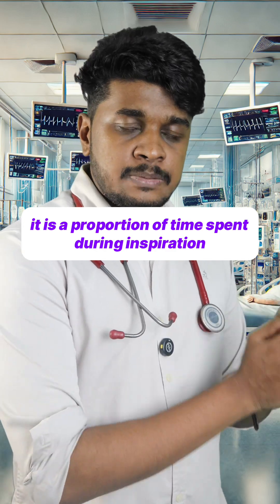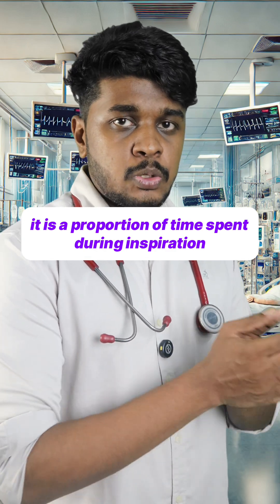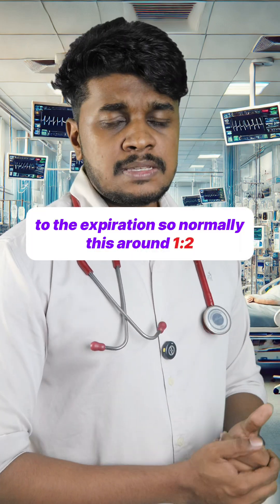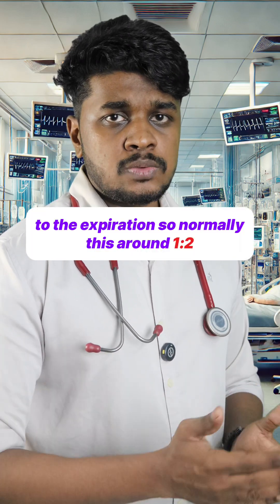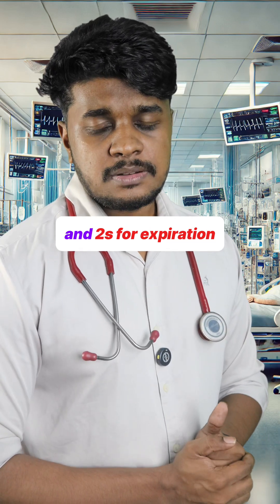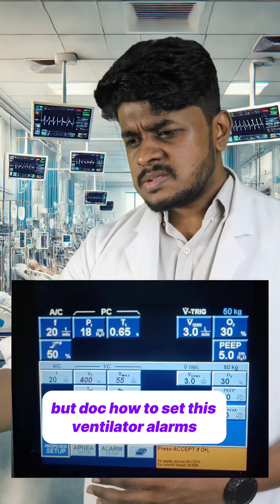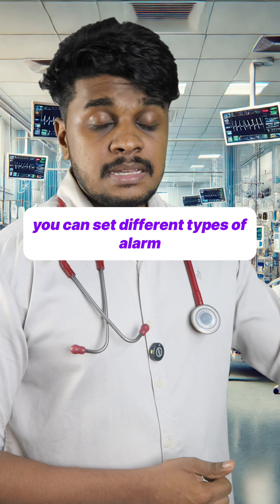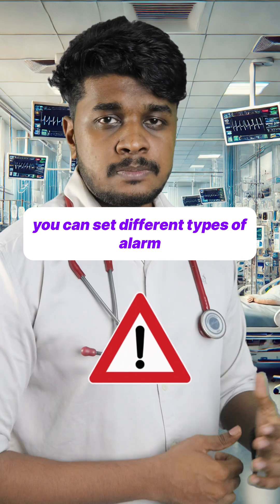And this one is the inspiratory-to-expiratory ratio. It is the proportion of time spent during inspiration to expiration. Normally it is around 1:2 — that is, 1 second for inspiration and 2 seconds for expiration.